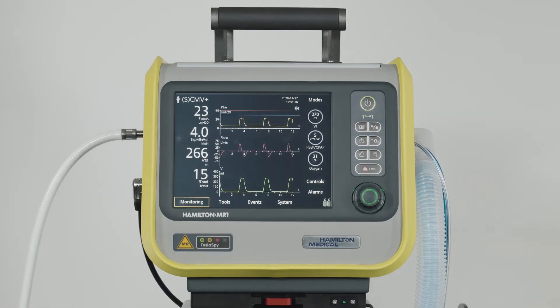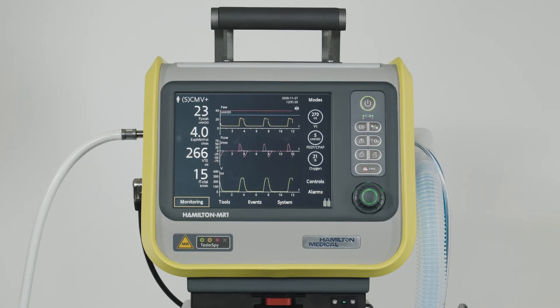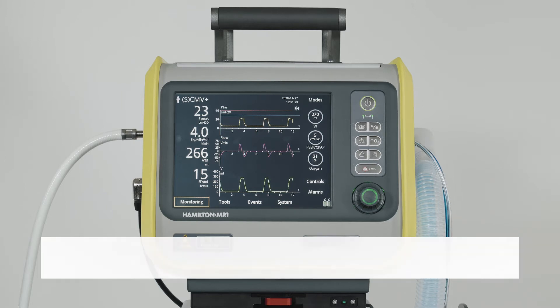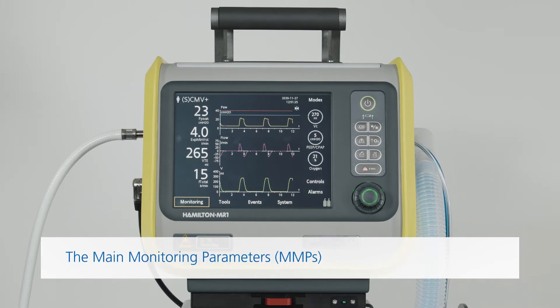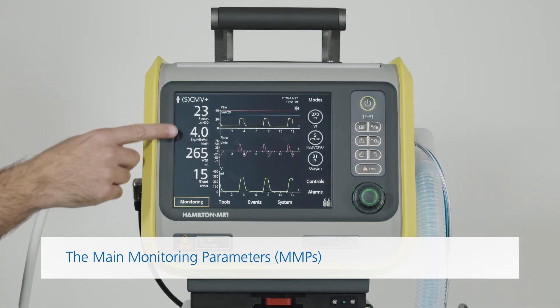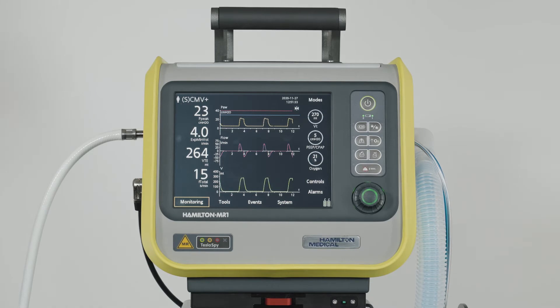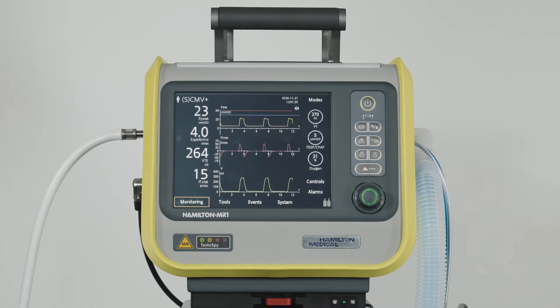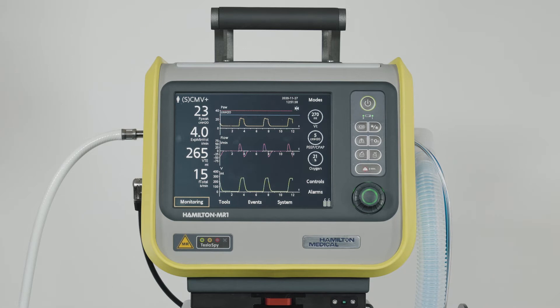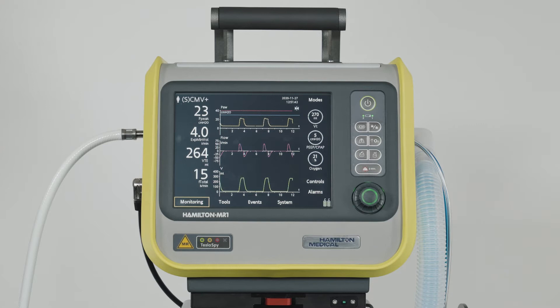Now let's have a look in more detail at how to access patient data and configure the screen layout on your Hamilton MR1. As already mentioned, the four numerical parameters shown on the left side are the main monitoring parameters. For each of these parameters, you can see the current value, the name, and the unit. Any of the monitored parameters can be displayed here — you can choose which ones to display and the order they should appear in.